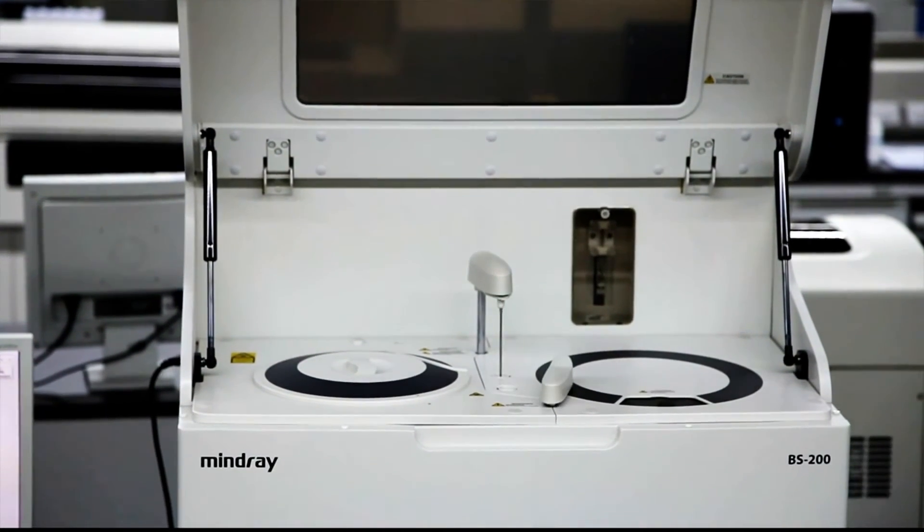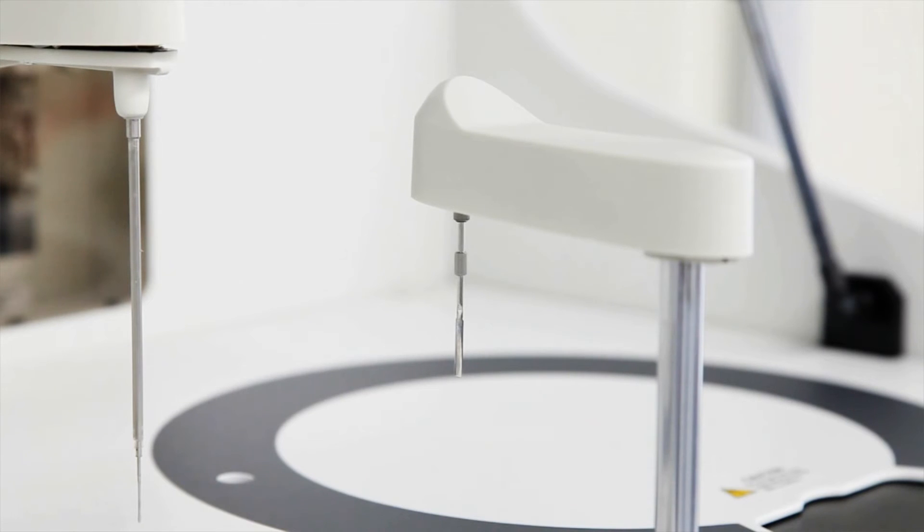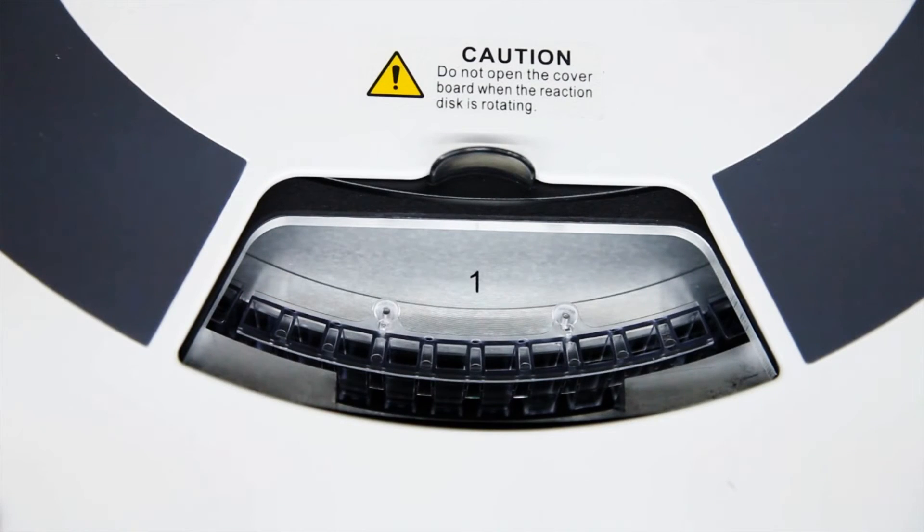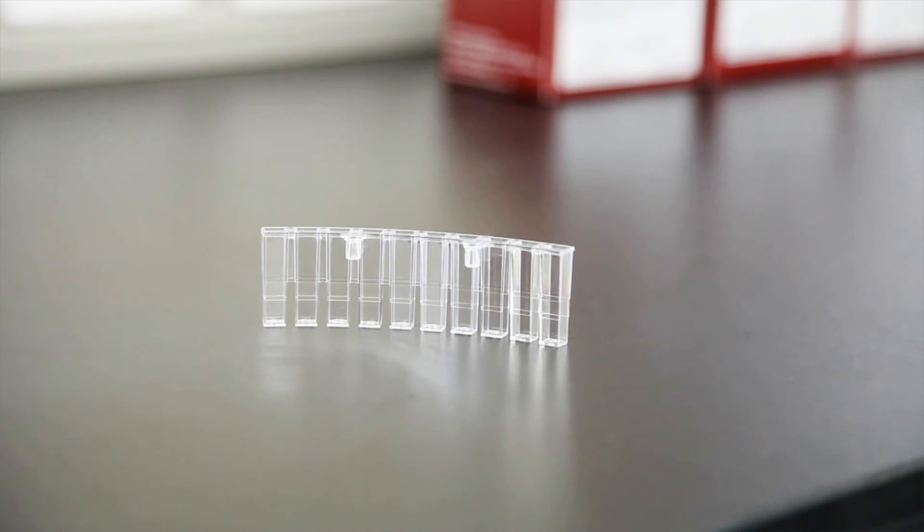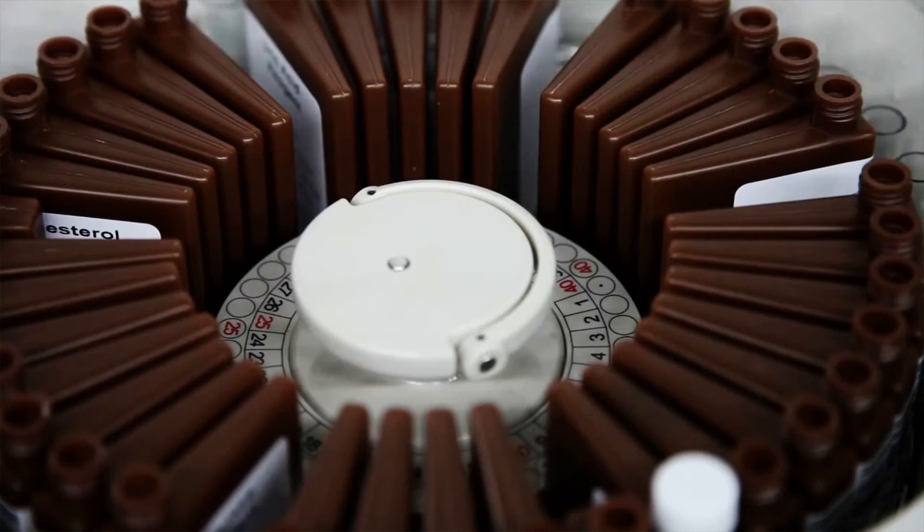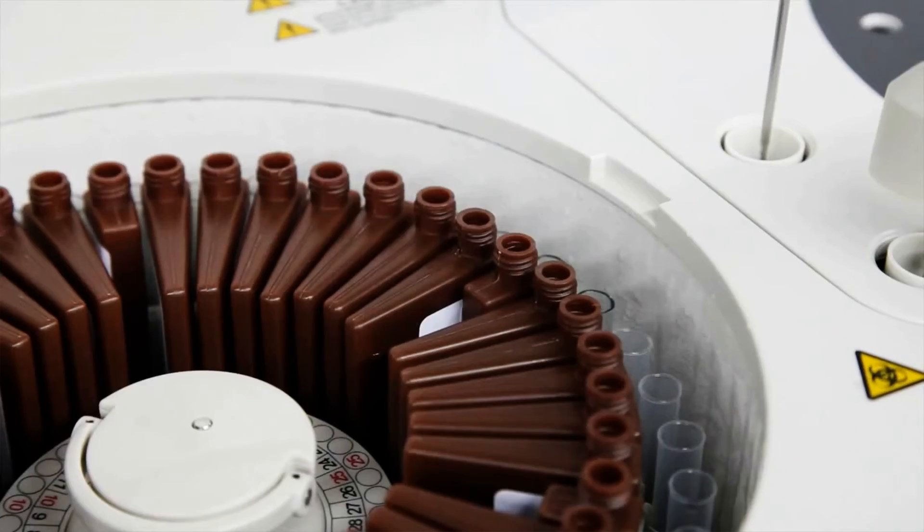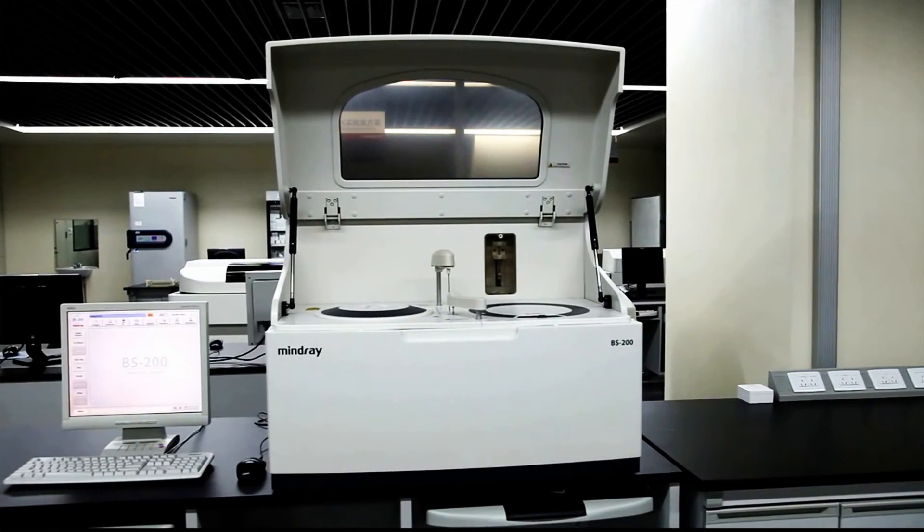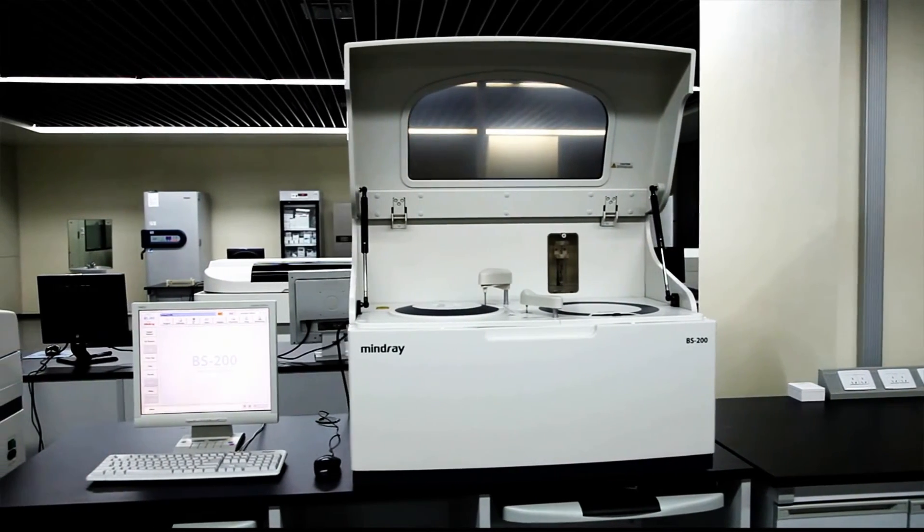The BS200 Analyzer is a viable and profitable clinical solution for today's laboratory, whose annual test volume is between 30,000 and 200,000 tests. The BS200 Analyzer consolidates workflow by processing both chemistries and drugs of abuse on a single system, making the BS200 the preferred choice for achieving efficiency and profitability goals.